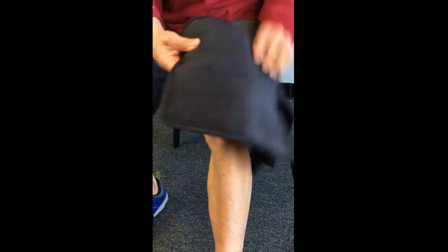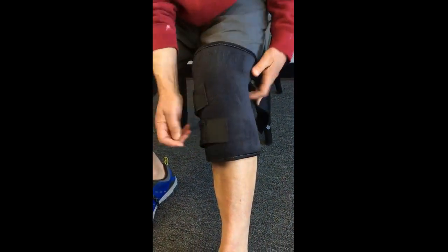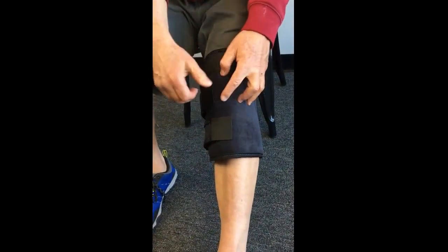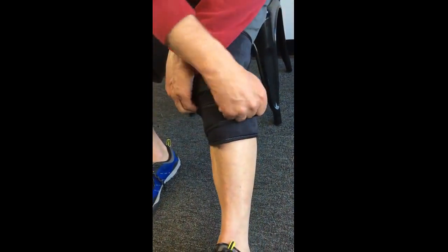Put on the wrap — you've got to be kind of quick now. Middle first, then the bottom, then the top. Okay, now point to the X again. Now tighten the middle strap. There you go, that's good. Good motion. Perfect.